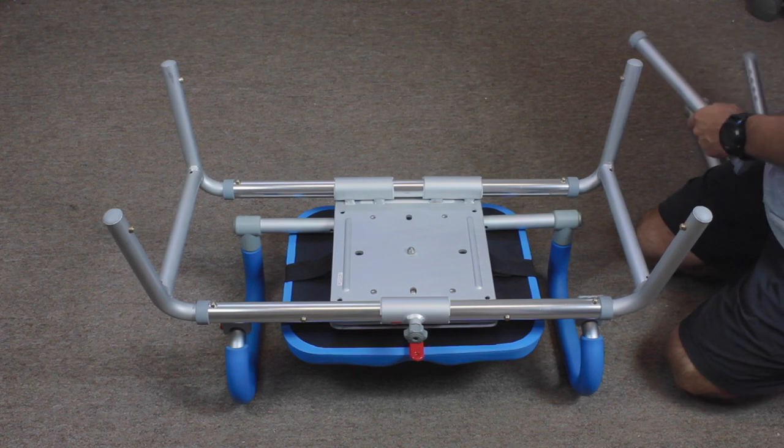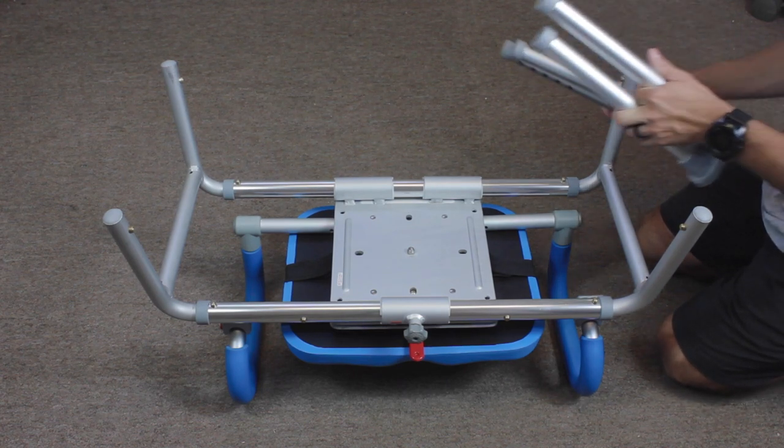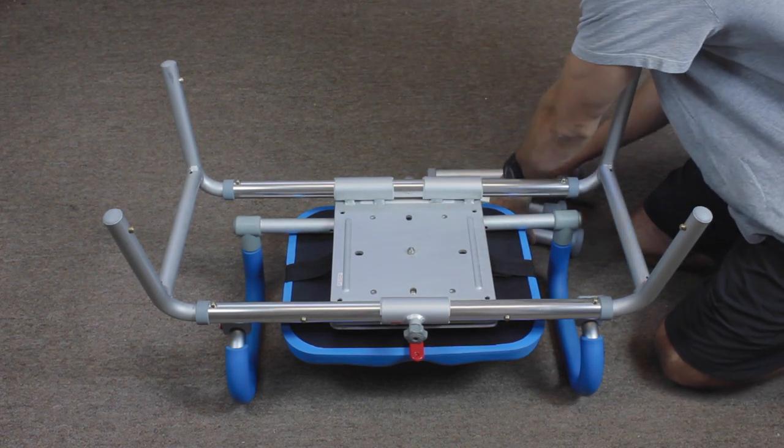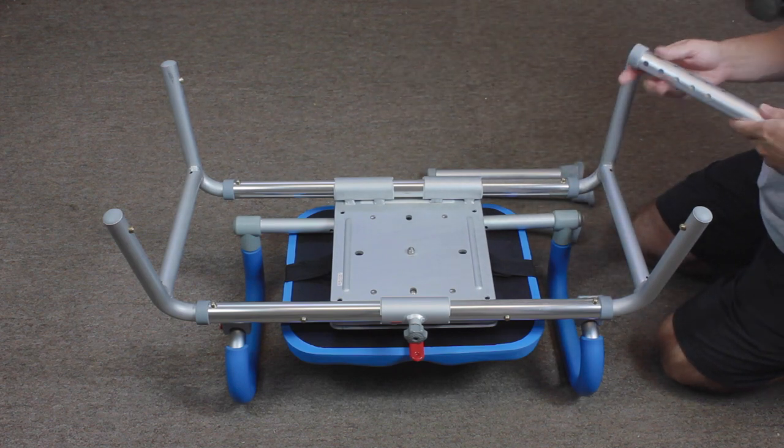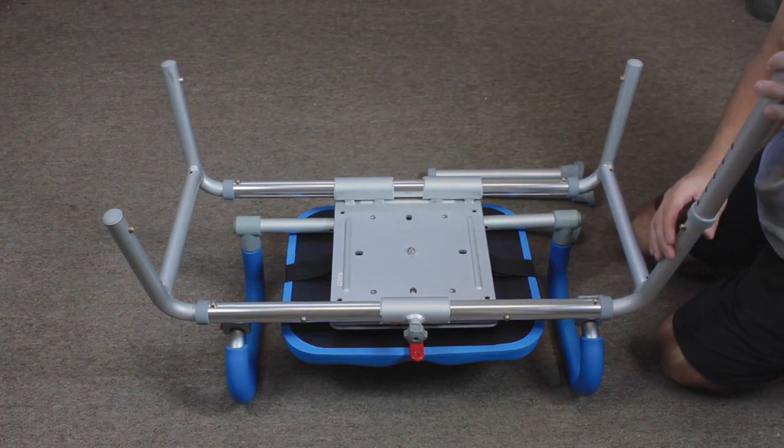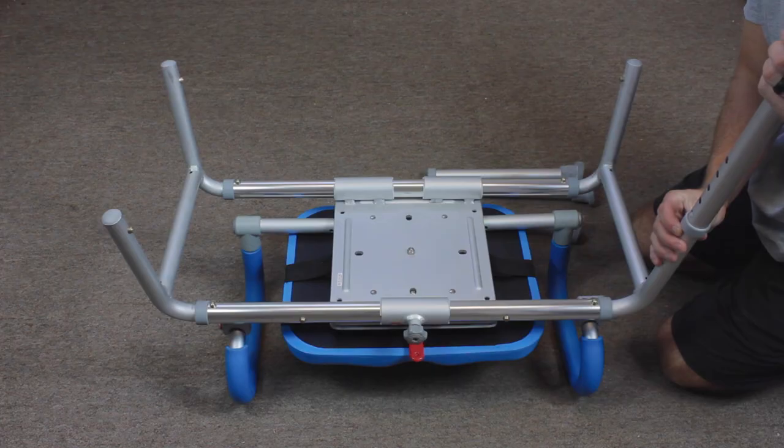In the same way that the brackets were installed, each leg has two series of punch outs that will slide over the brass button and lock the leg in place on the carousel.